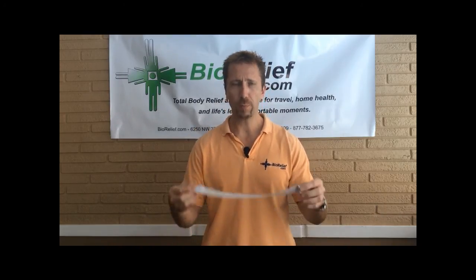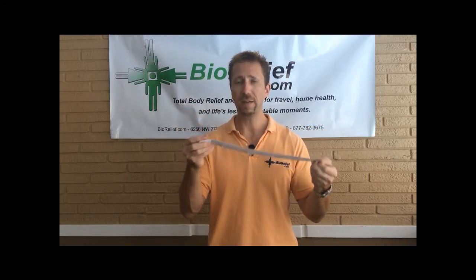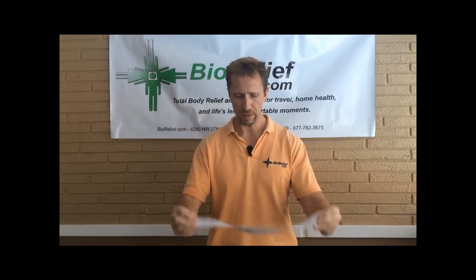The leg straps are an improvement. For the upper leg strap, it is a wider strap. There are some button fixtures here and we'll show you how to incorporate those onto the leg bag. These straps are cut to fit, so you will be needing to trim the length of these. These have already been trimmed and there is Velcro on one end. For the lower section of the leg bag, it is a thinner strip with buttons as well, also designed to be trimmed.